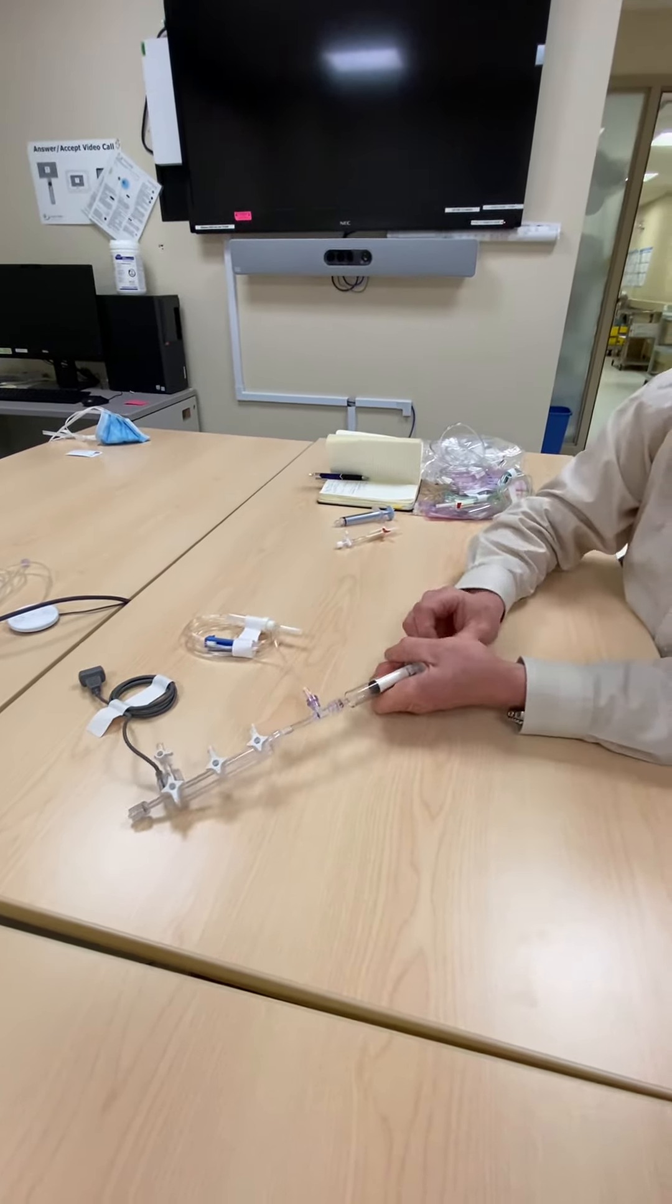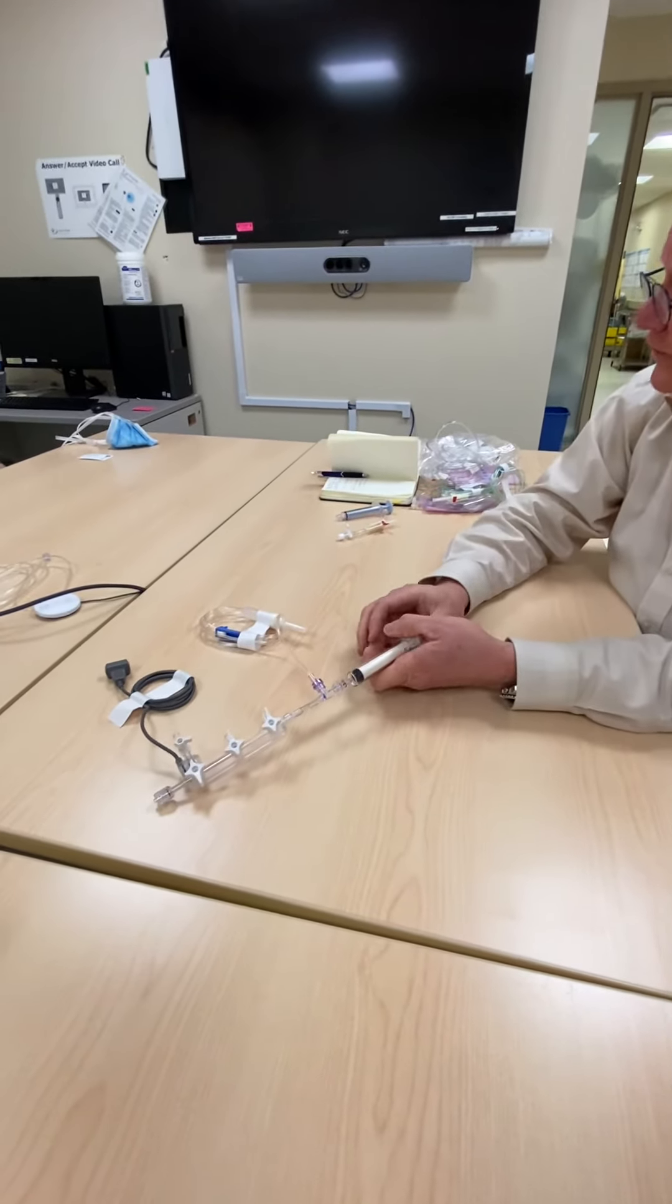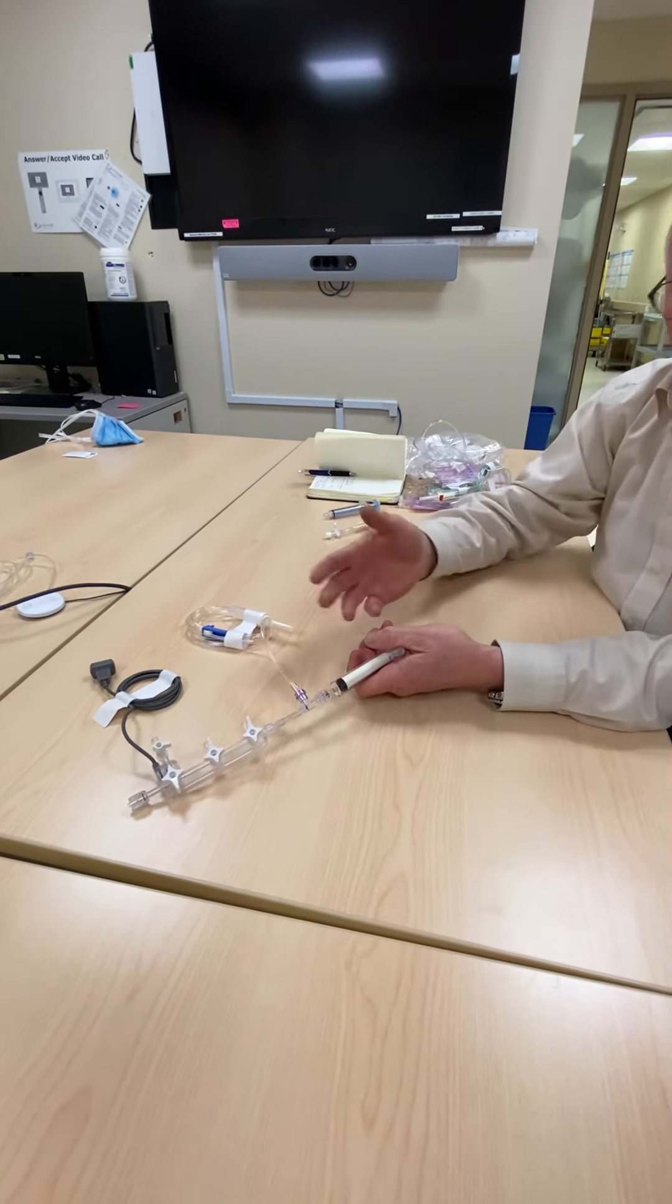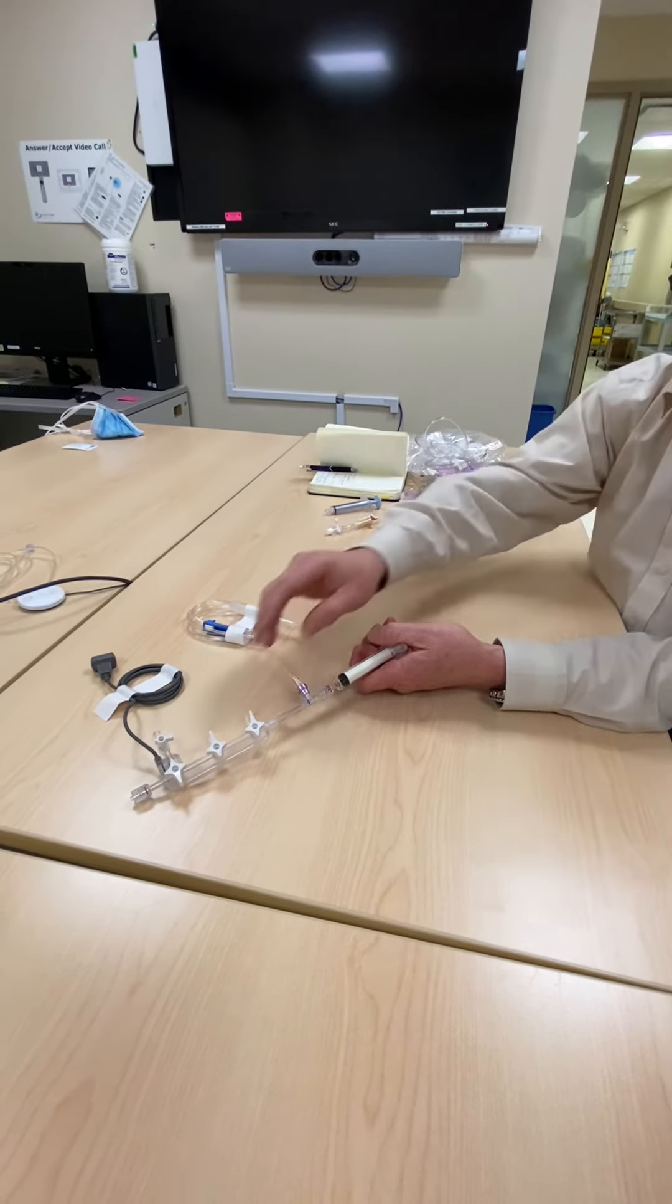And you can go push slow, you can push fast, you can do small ones or you can do big boluses, but it's nice and it's simple. And it gets rid of using all these stopcocks, except for when you're actually bleeding your lines. And you have two more ports.